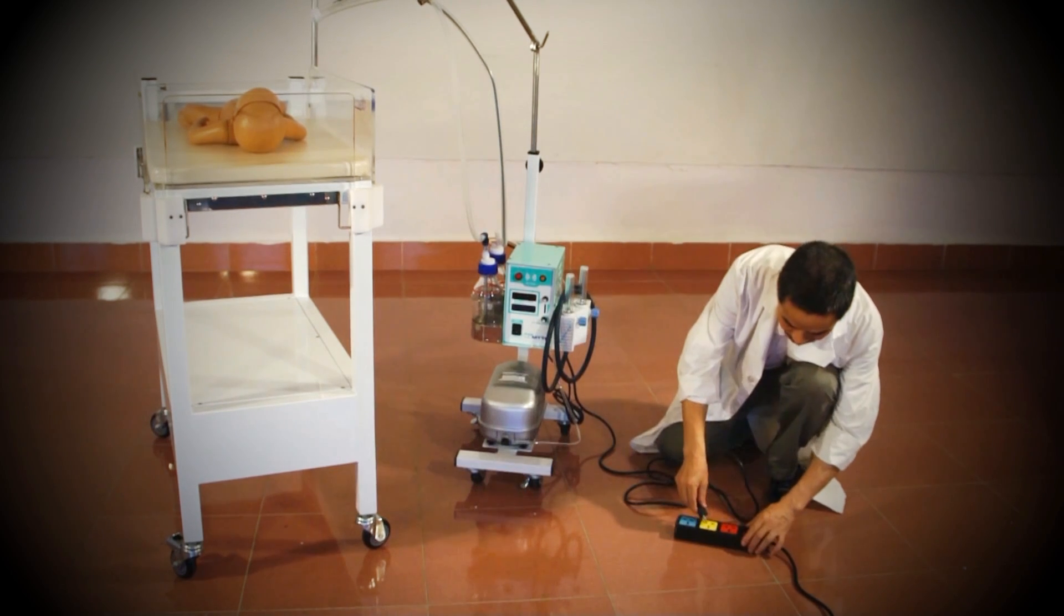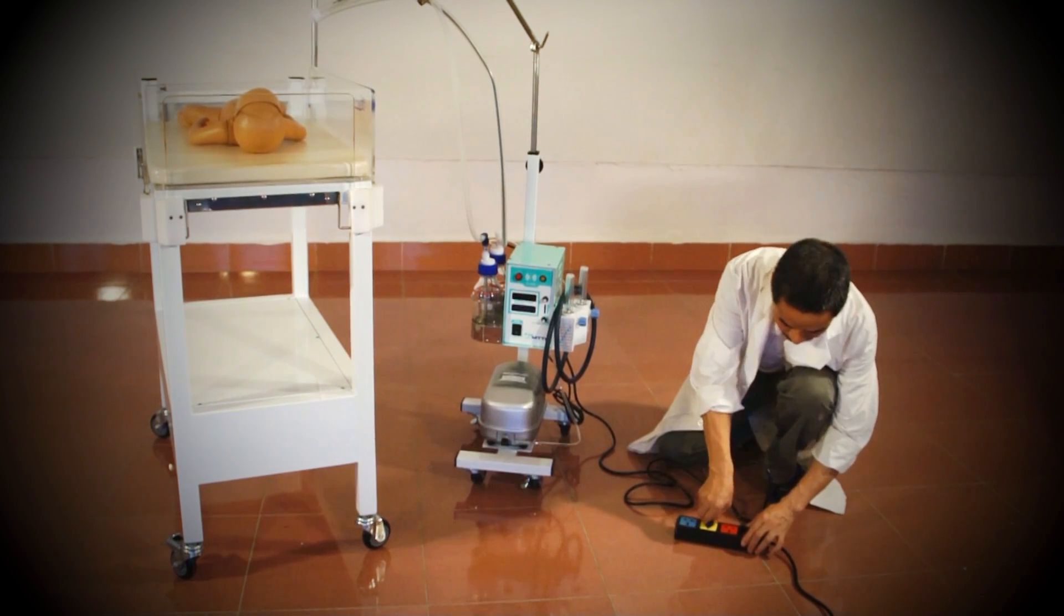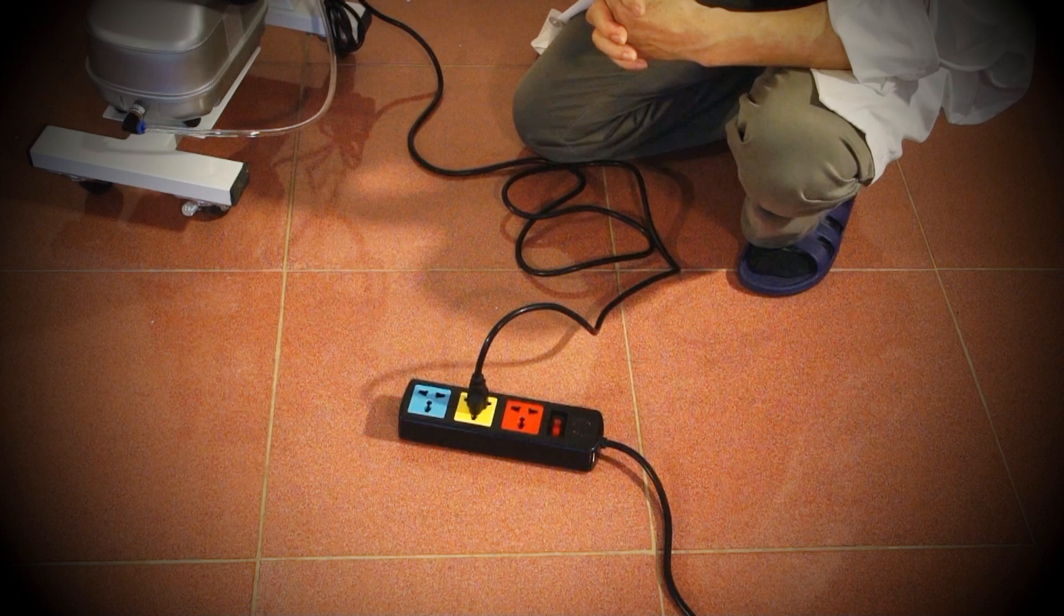Once the oxygen source is connected, you can connect the CPAP to a power source. Make sure that the power plug is the same size and shape as the one that is provided with your CPAP.